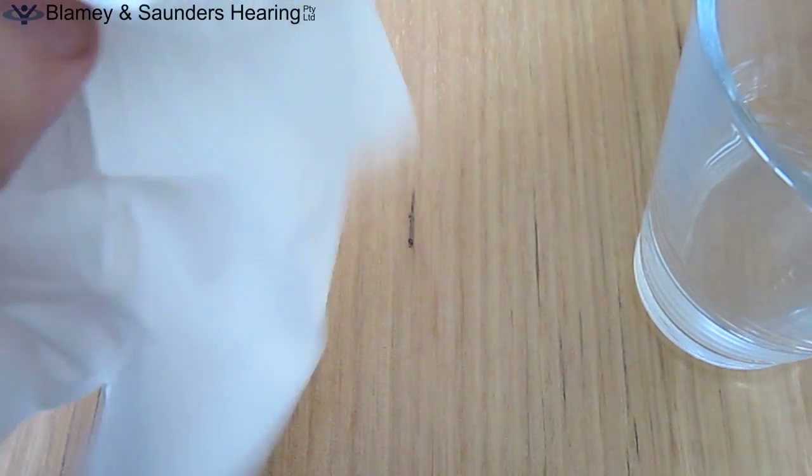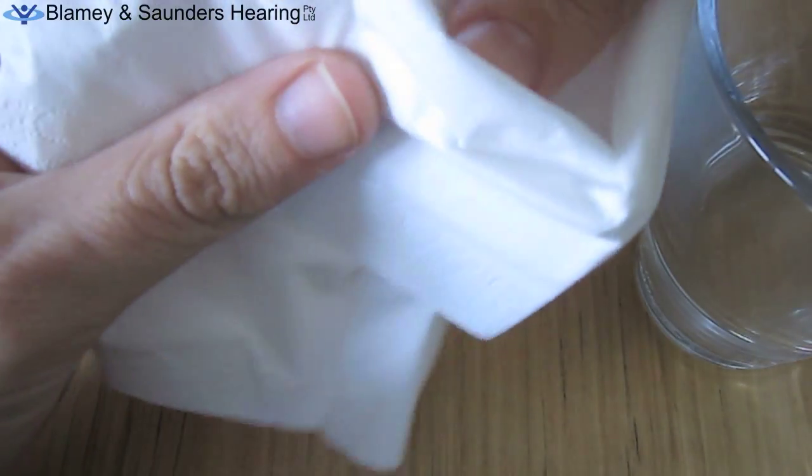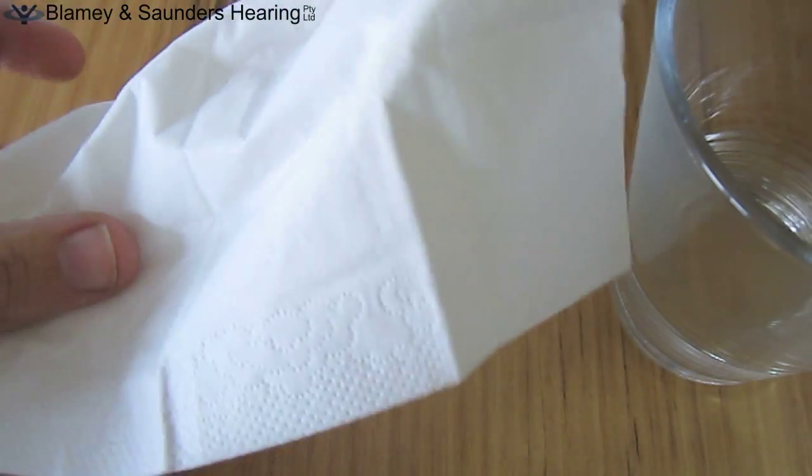This is a video to demonstrate the hydrophobic nano coating water repellent that is now being used on Blamey and Saunders hearing aids.